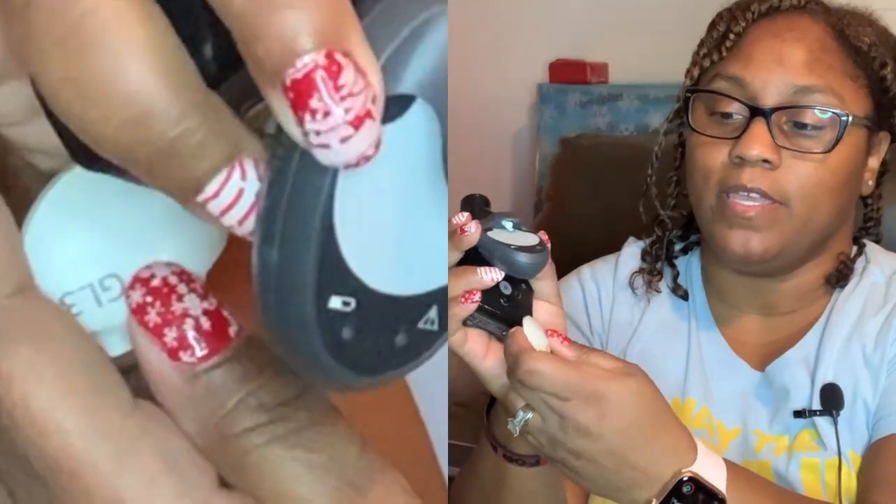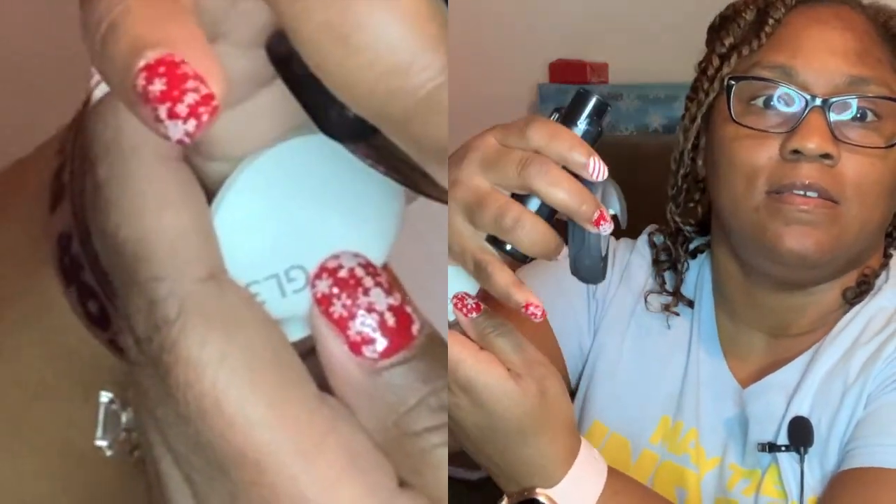Search. As it's searching, I'm going to remove the transmitter and it's going to blink green lights — it found the device. So I'm going to check that, and it is. It's finishing up the pairing. Pairing successful, by the way.